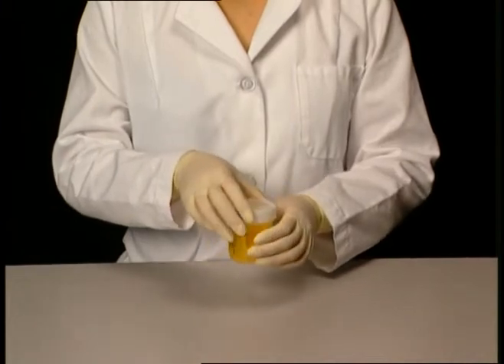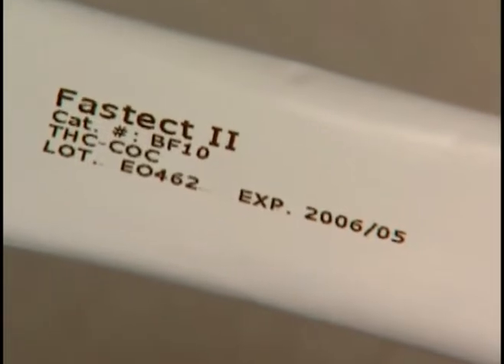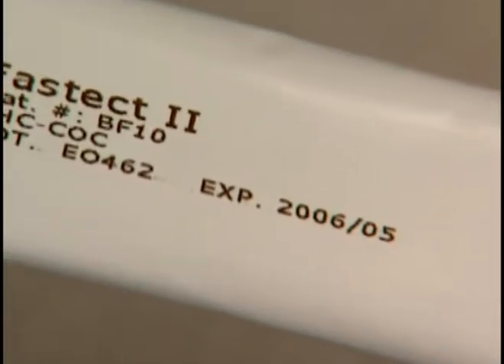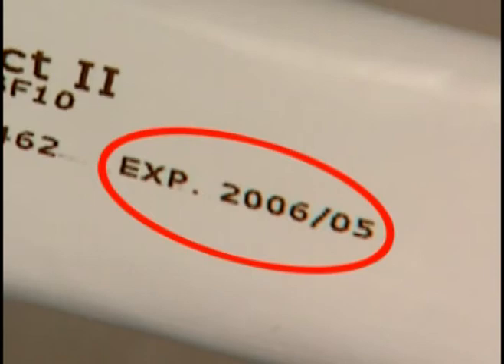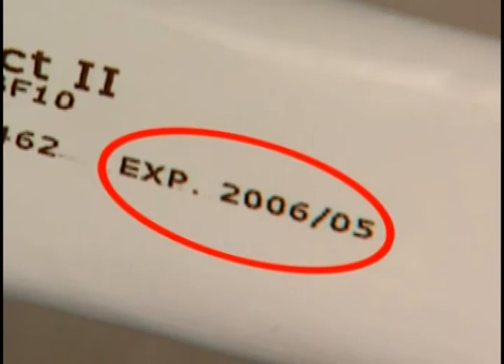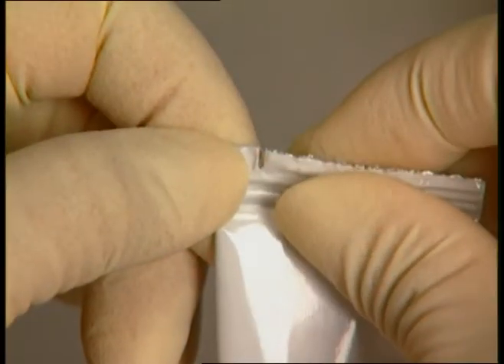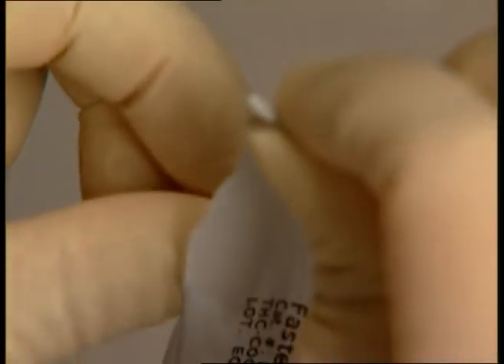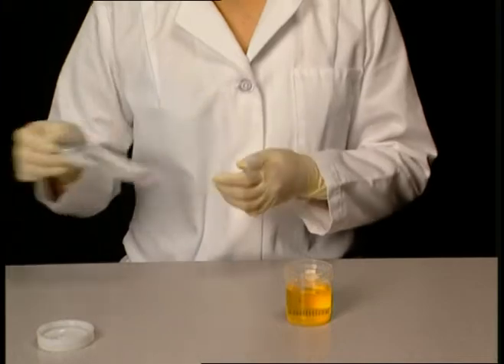The test should be performed in the following manner. Before use, verify that the expiration date on the pouch is valid. Discard the device if the expiration date has been exceeded. Remove the test device from the sealed pouch by tearing at the notch. Discard the device if the package is ripped or torn.